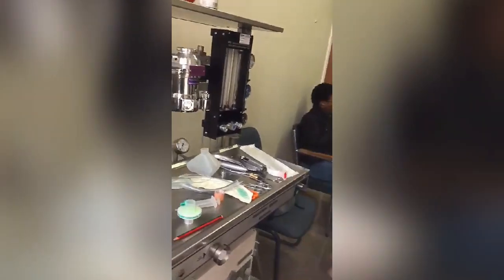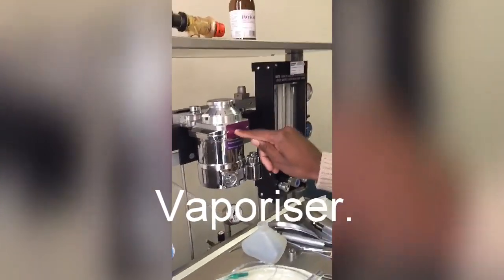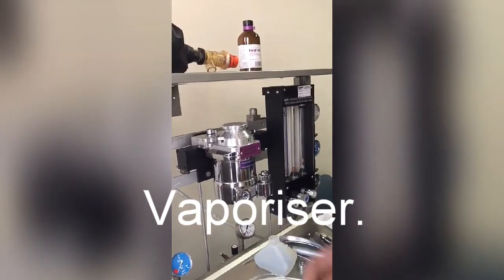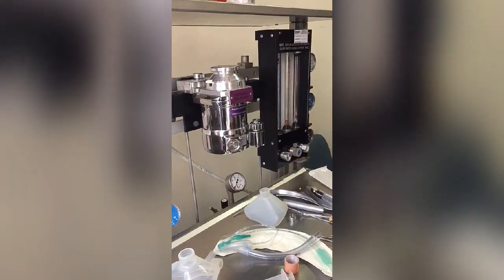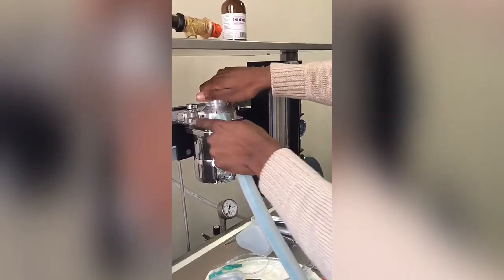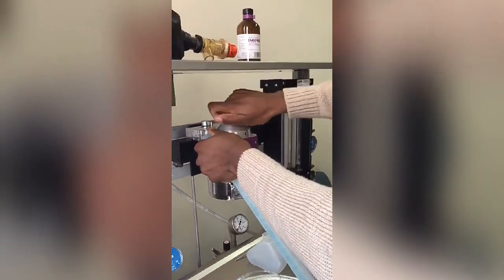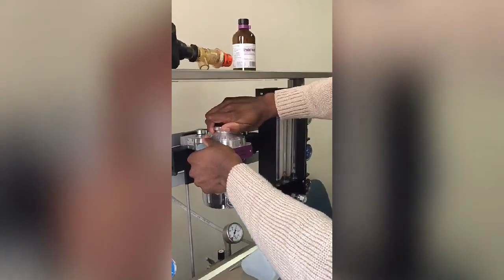Wait 10 seconds and make sure there is no leakage at all. Then move to the vaporizer — this is isoflurane, and make sure the bottle corresponds to the correct vaporizer. Check that there is clear fluid visible in the window, the fluid level is between the two lines, the filling port is closed, and the dial is locked at off. Open it through its full range, then close it again and make sure it is at off.